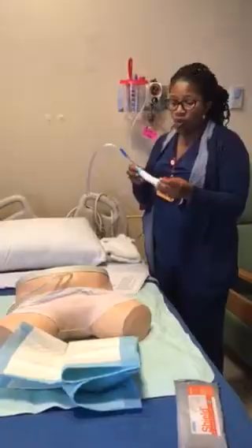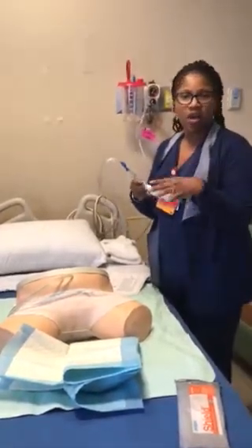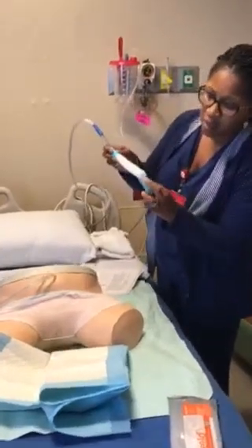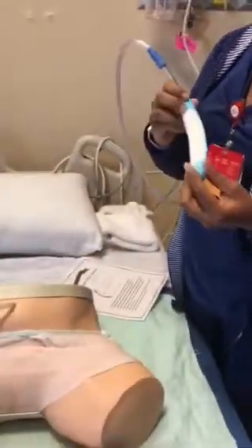The patient also won't feel any of the suctioning. They'll only have like a breeze — this is like a real breeze — but the suction is at the bottom, so they're not going to feel that suction against them.